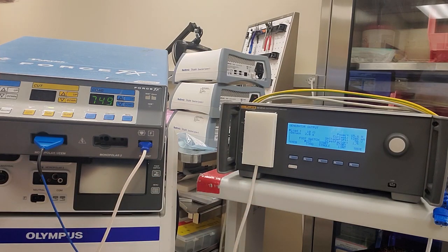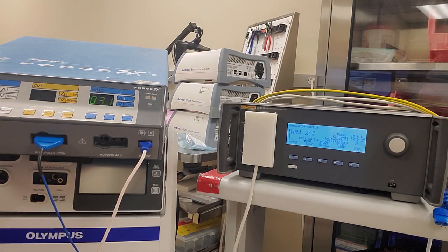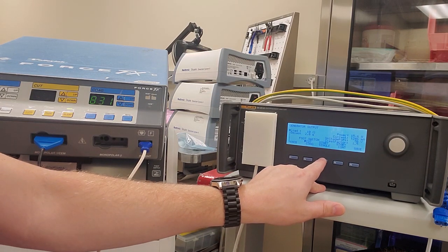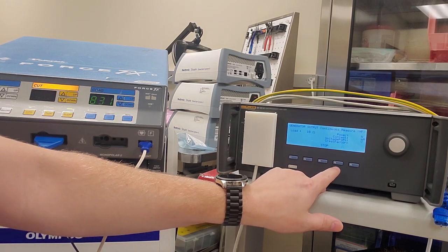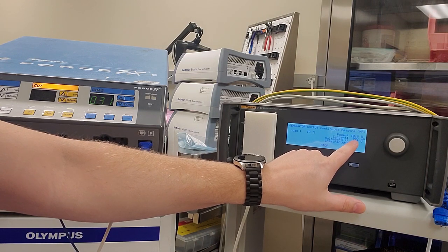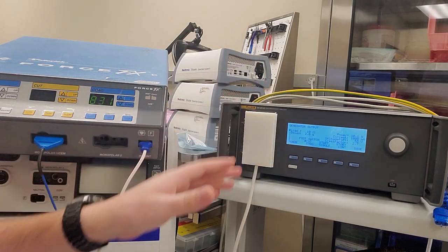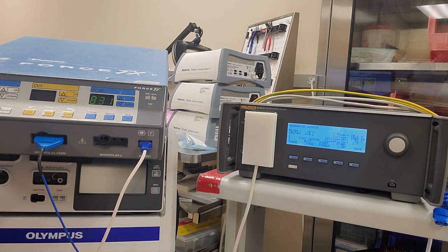Next, press the Blend button — now we have to adjust to 1000 milliamps plus or minus 8. Hit Start Continuous. It's already sitting right at 999 to 1000 milliamps, so it knows where it's at on the blend current. We're good there.